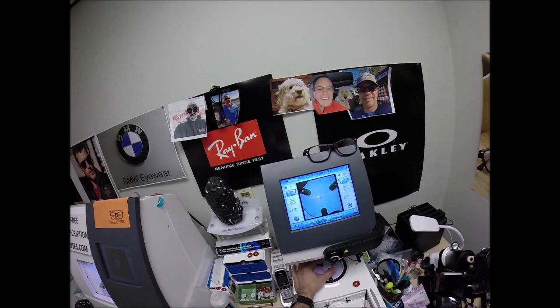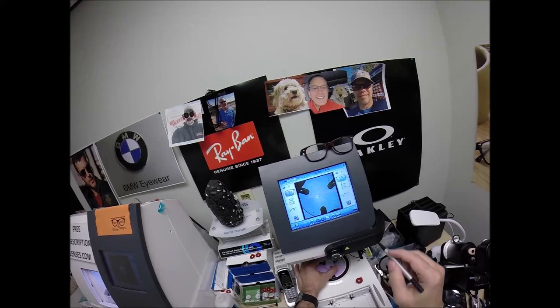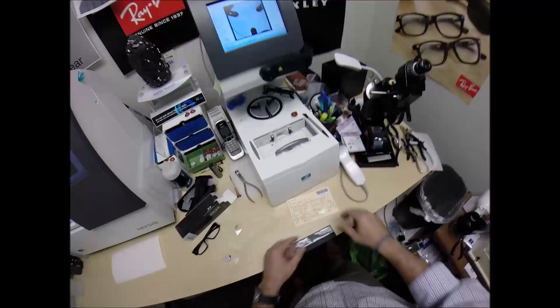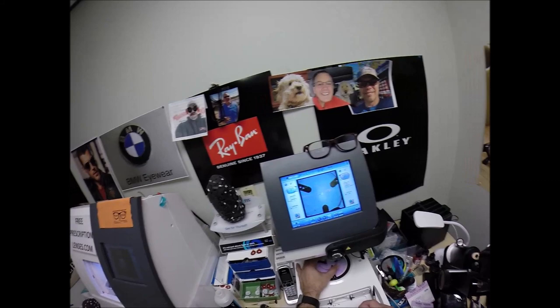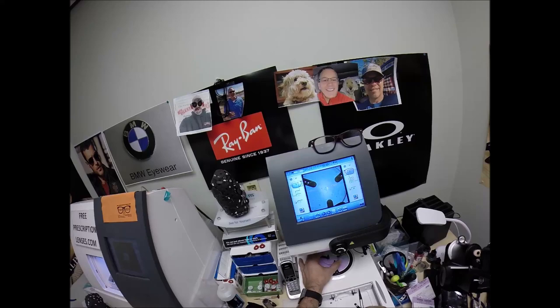I'm going to take that down, that's no longer needed. One of these is a right lens, this one with the letter R on it. I'm going to move that on there. Place the, the reason why I put those three dots on there, it tells me exactly where it's supposed to be oriented. And well only if I'm going to do a good job that is. You know if I don't have to do a good job, that's close. I can do whatever. So I'm going to hit that button, the block's going to come down, place the block onto the right lens. But you know I'm going to do a good job for you. That's why I filmed myself, I have nothing to hide.